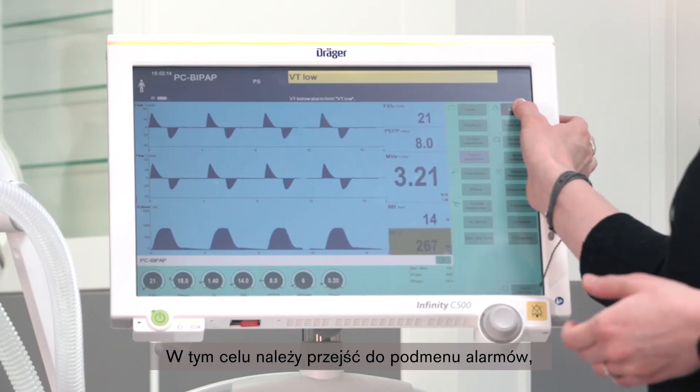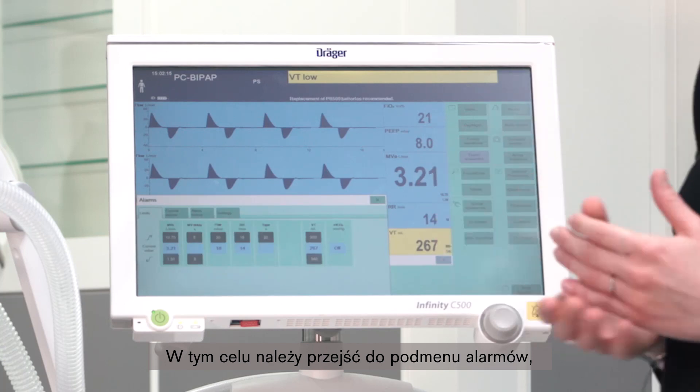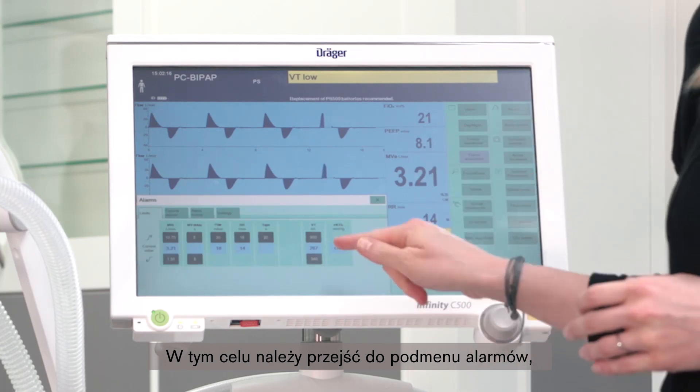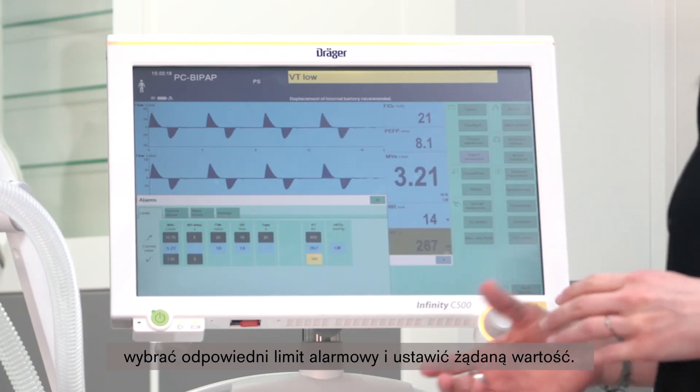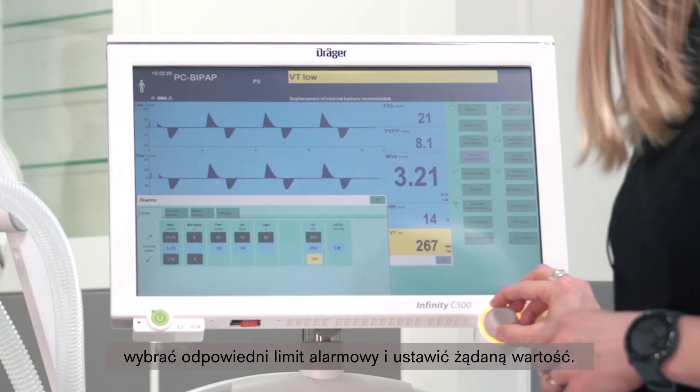Therefore, enter the submenu to alarms, select the respective alarm limit, and adjust it to the desired value.